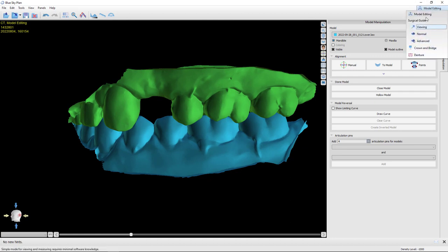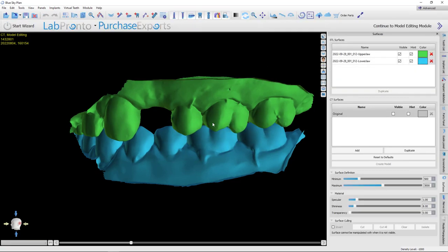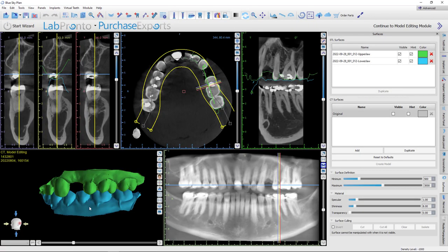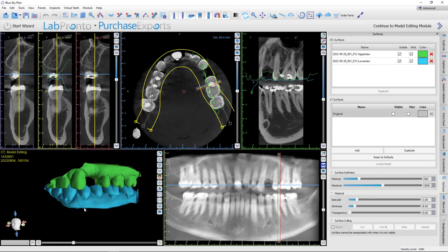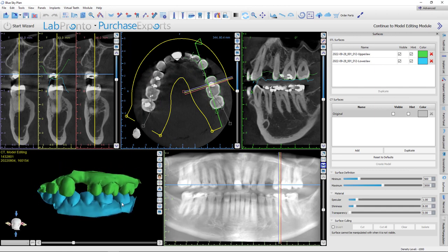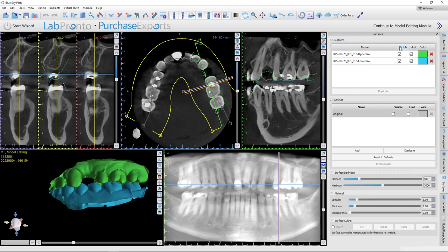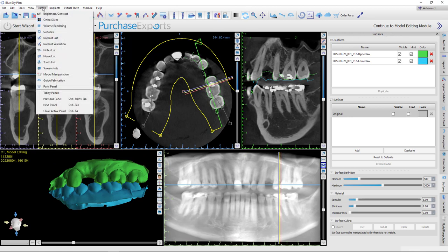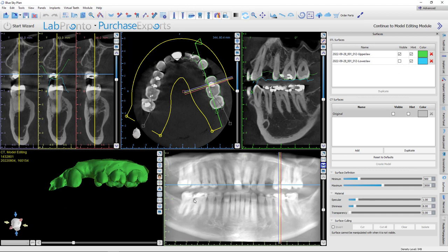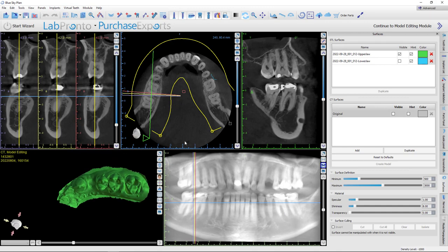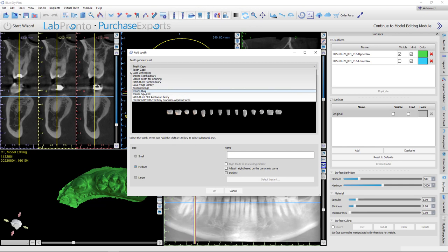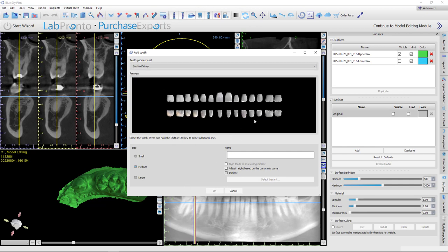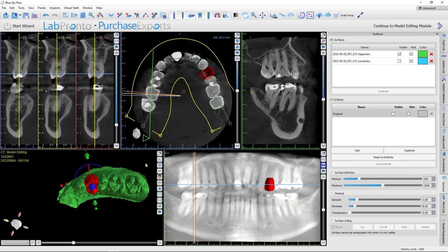OK. With that done, we're going to go to surgical guide mode. Now I am working in advanced mode. Some of you, if you're newer to this, might want to work in normal mode, which would have kind of a wizard that leads you through the steps. Personally, I like the flexibility of working in advanced mode because I can jump around and just kind of do whatever I want. OK. So for starters, I'm going to be in the surfaces panel here. Any of these panels I mentioned, if you don't see them, you just come up here to panels. There you see surfaces. And this is where you can turn objects on and off. OK. So for starters, I'm just going to take a random tooth. So plus tooth. And you can choose whatever library you want. I'll use this Bastion Deloge library. And let's choose tooth number 12. And I'm just going to drop it into place here.